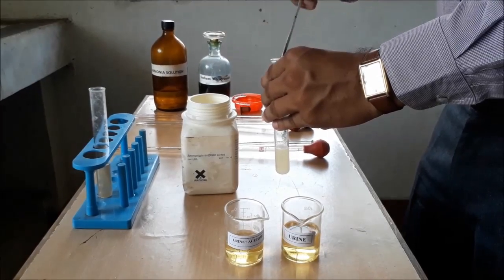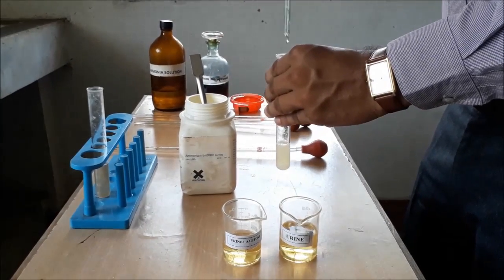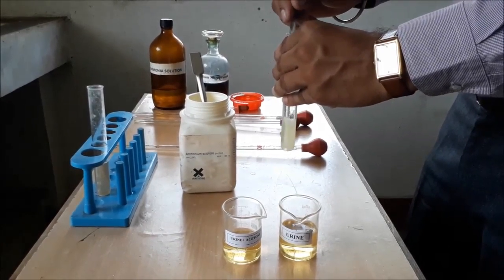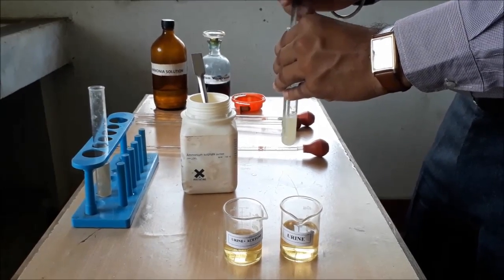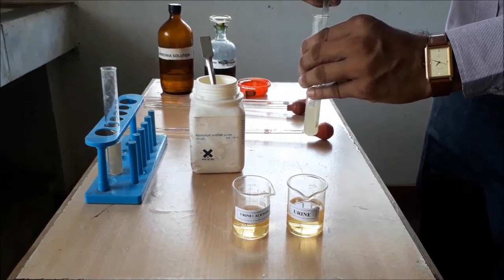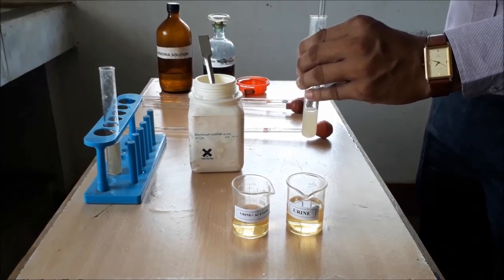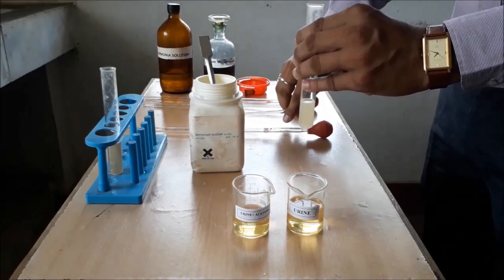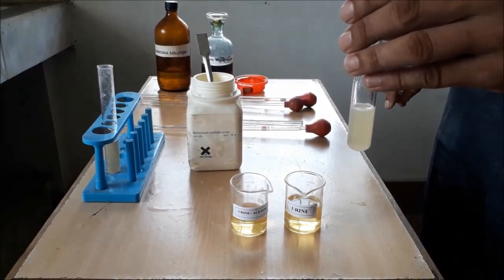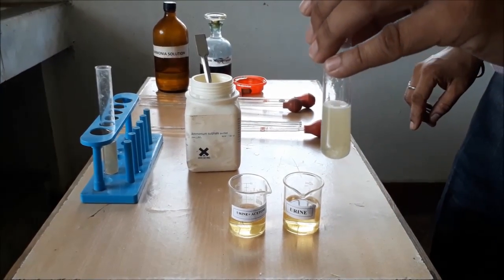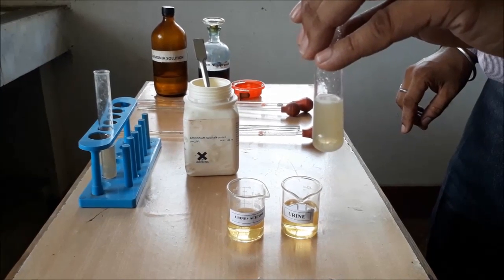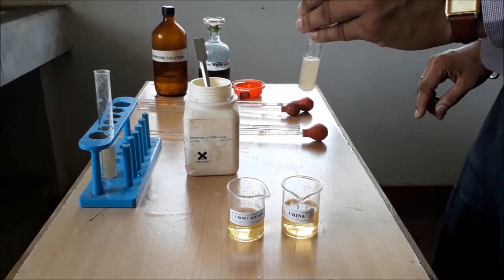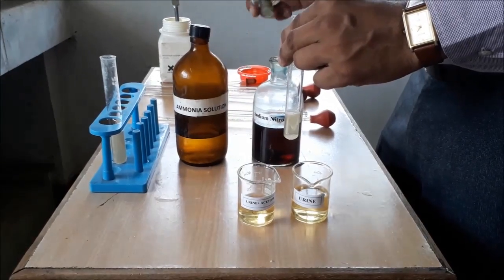See, there is more possibility of solubilizing the ammonium sulphate. So I have added 1 to 2 spatulas of ammonium sulphate to this solution. Now, that point has been reached where no more ammonium sulphate is getting solubilized. You can easily see the residue of ammonium sulphate.